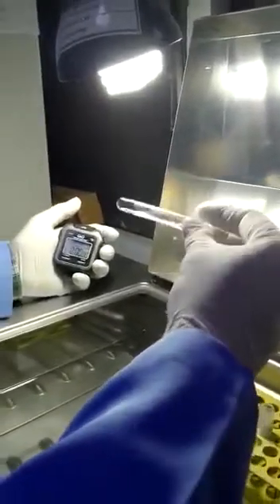This is 38 seconds where the clot is seen. You can see the clot is now becoming more stabilized, but we stop the watch when we first see the clot. This is 38 seconds. It is a little bit more in the patient, as the PT was normal. The aPTT should be within 36 seconds. It is a little bit, 2 seconds, more. Then we will further proceed to find out why it is increased.